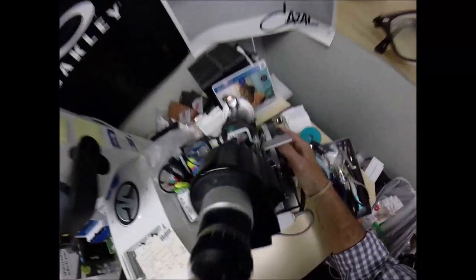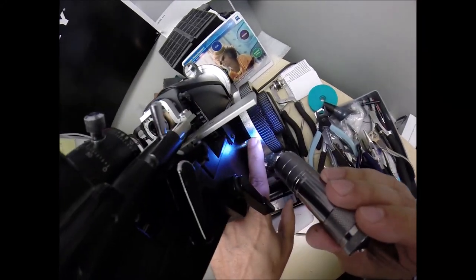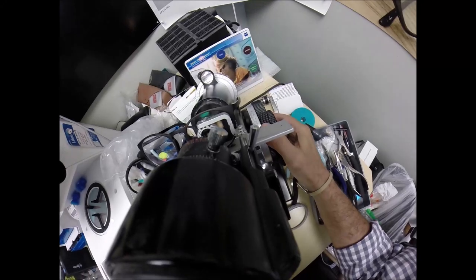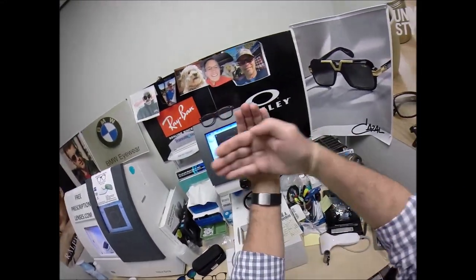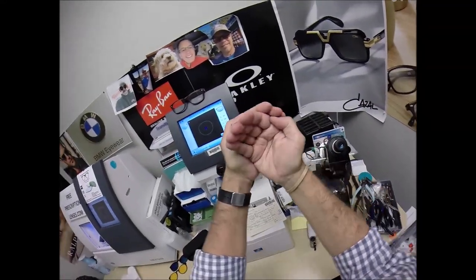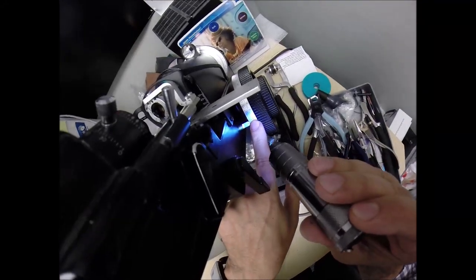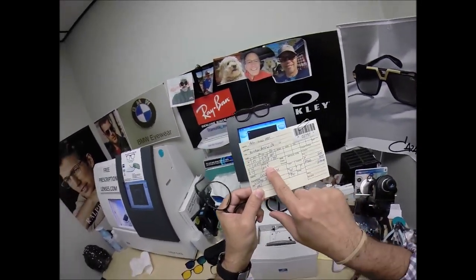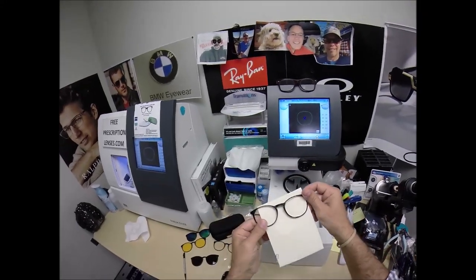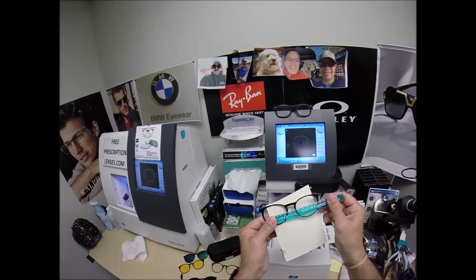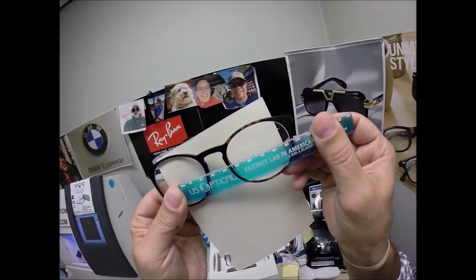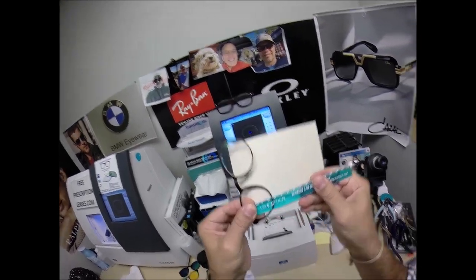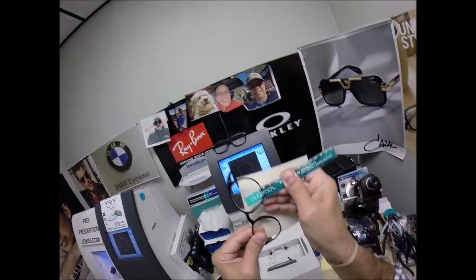So, let's read the first power. We're getting minus a quarter, one tick mark away from zero into the red minuses, not the black plus, the red minuses. Let's read the second curvature of your lens. So, you have a minus a quarter this way. You have two diopters steeper this way, 90 degrees apart. That's how we line those two meridians up to make everything nice and crisp. And we're at minus two and a quarter, going away from two, going towards three. Now, drum roll, please. PD of 68, optical center height of 24.5. Turn the card around. Place the PD stick against my thumb. And when I read on the left lens, we're getting 68 millimeters. Now, not to the bottom of the lens, but to the middle of the plastic at the deepest point. Look at that. 24 and a half. 24 and a half. Man, the kid is good.